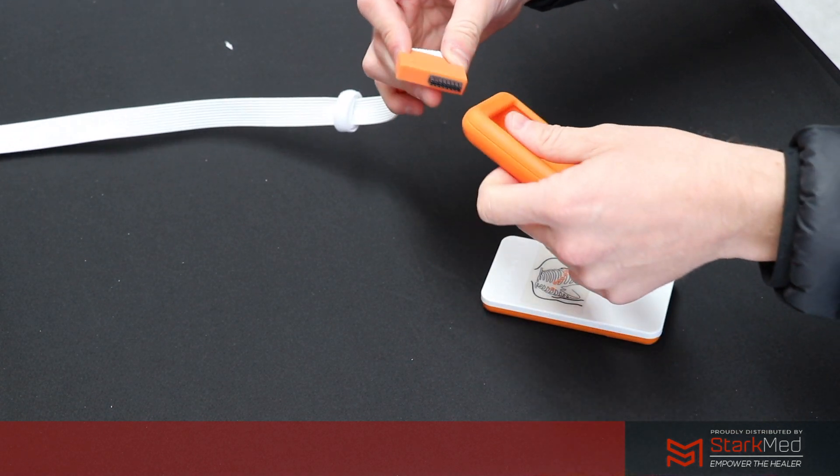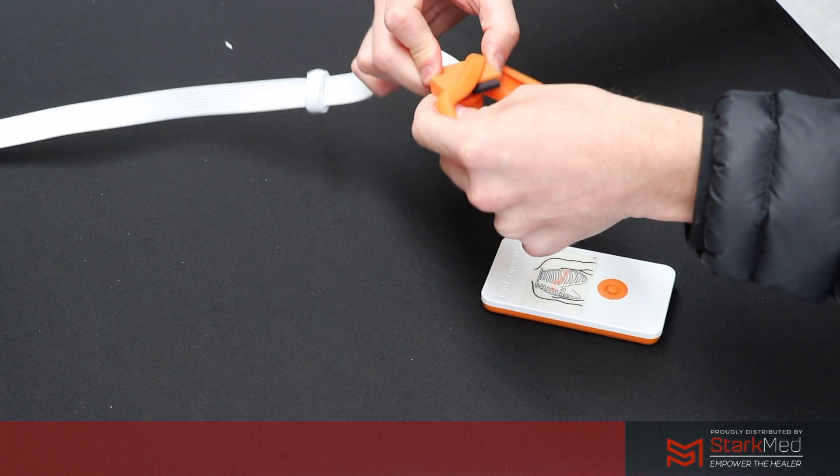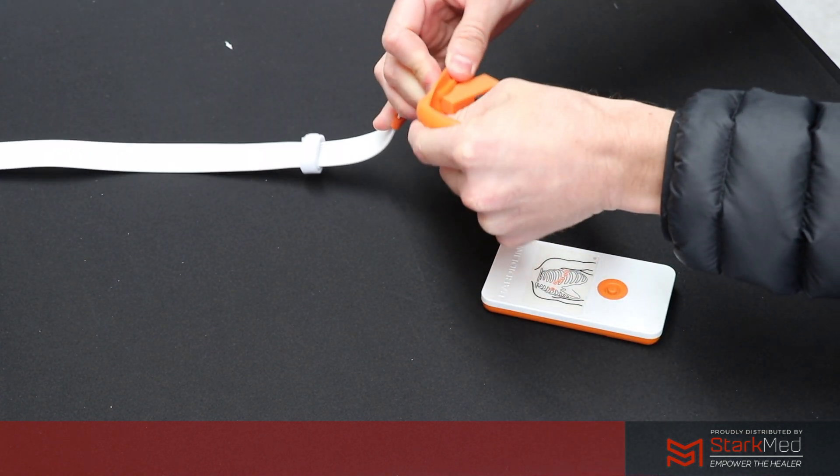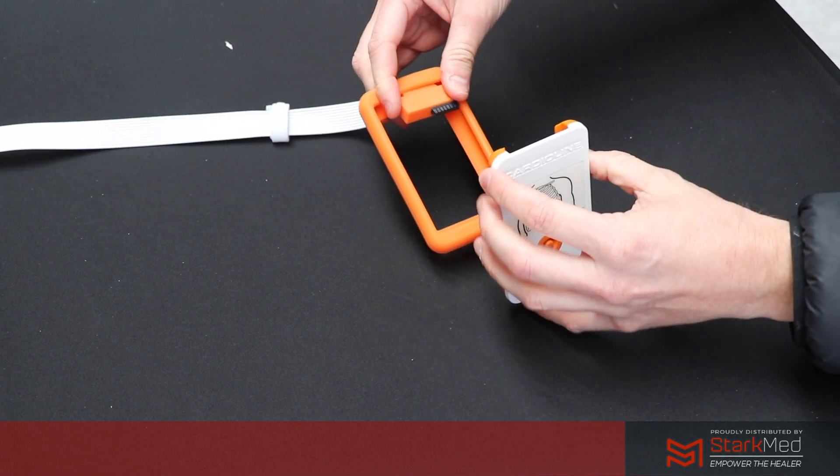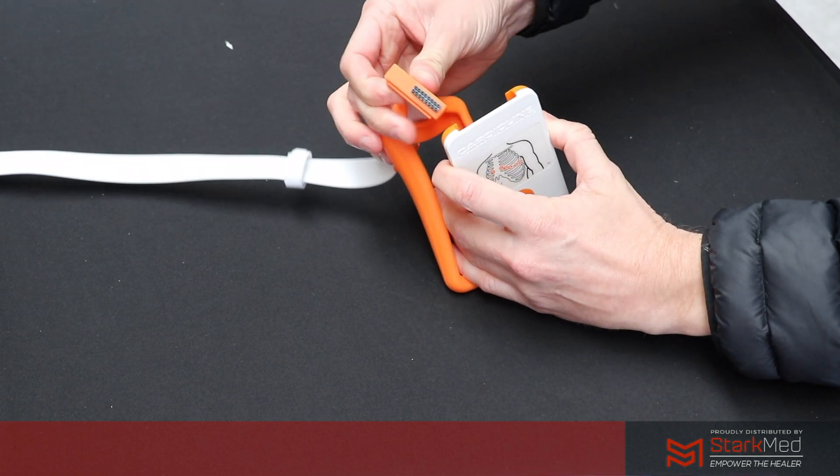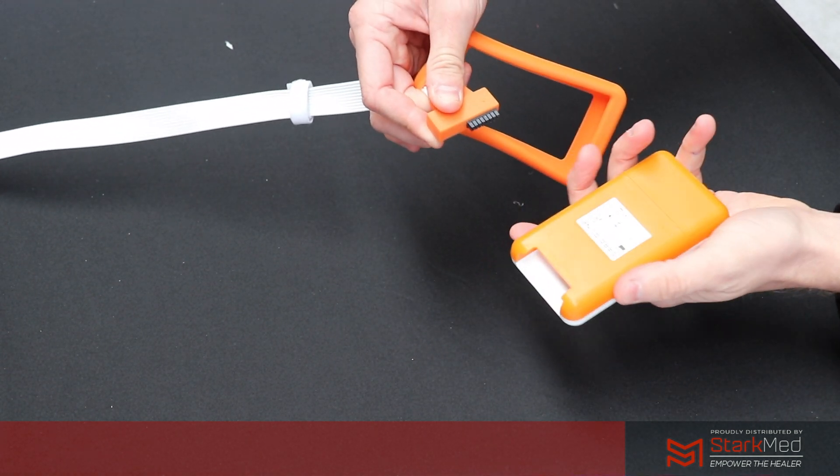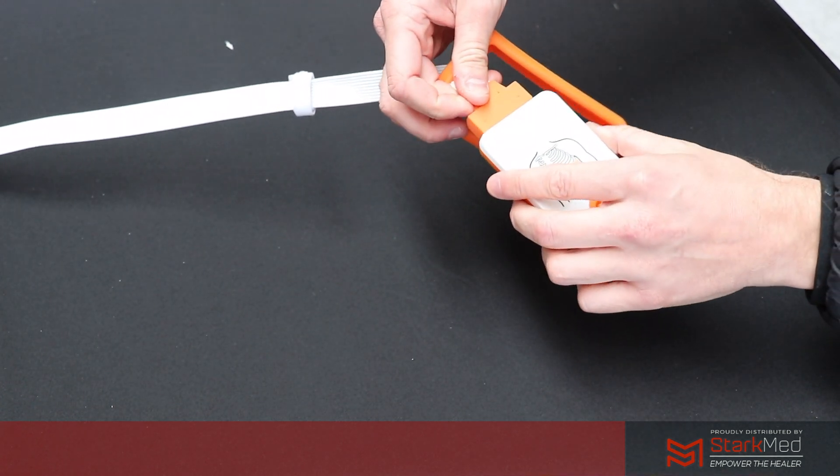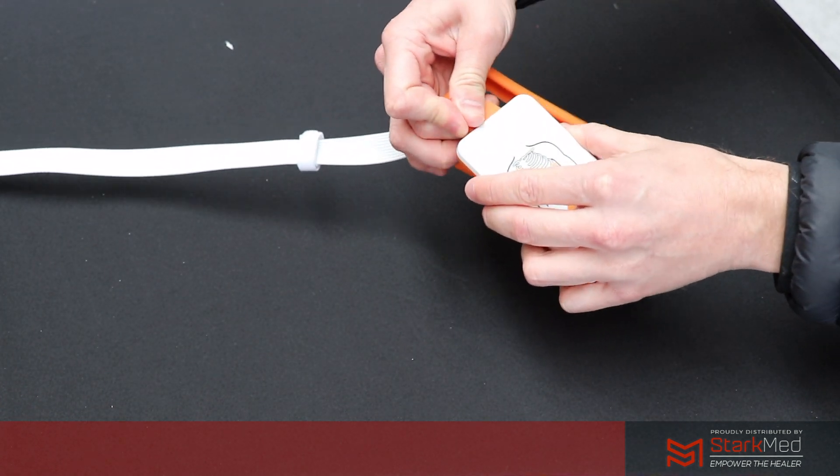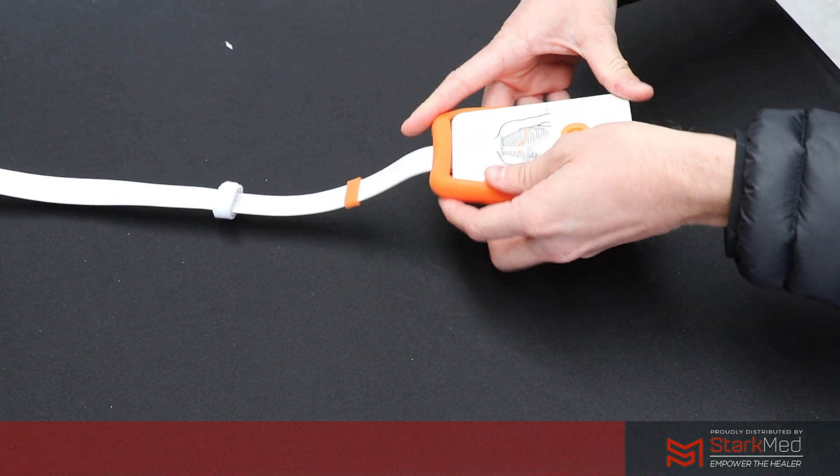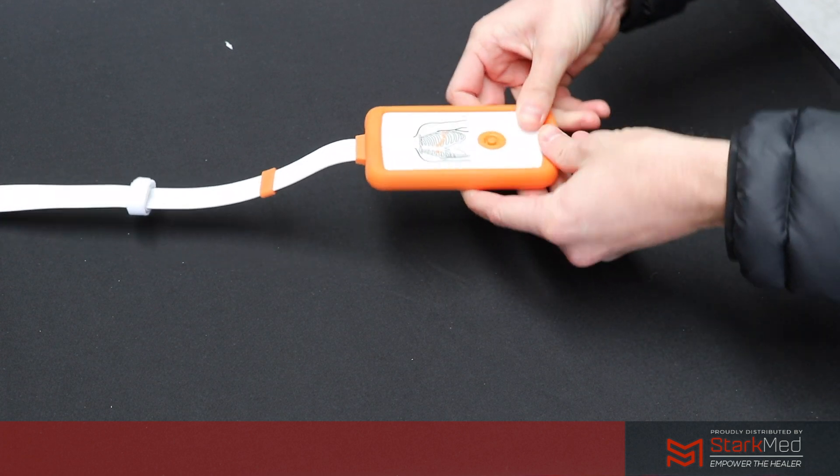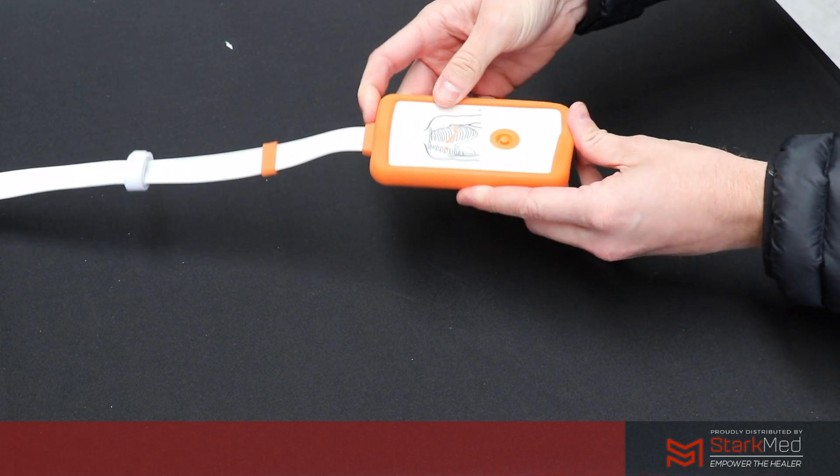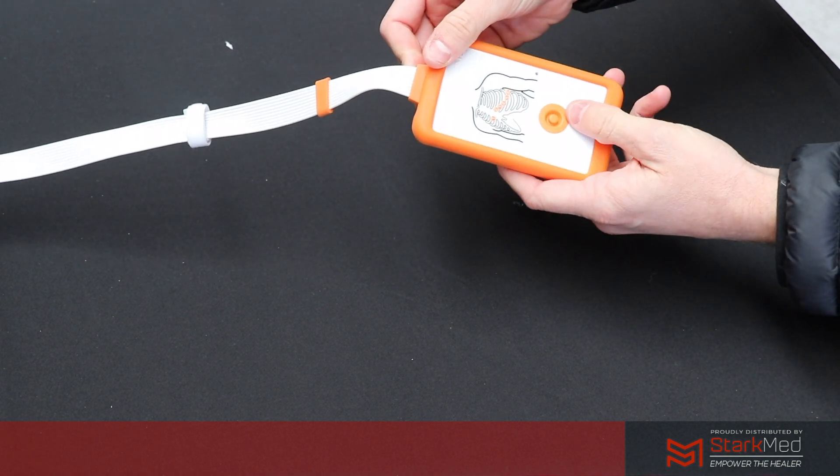And then we're going to place them into our acquisition unit device. It's only going to go in one way. Put that on the acquisition unit and now we're ready to go.